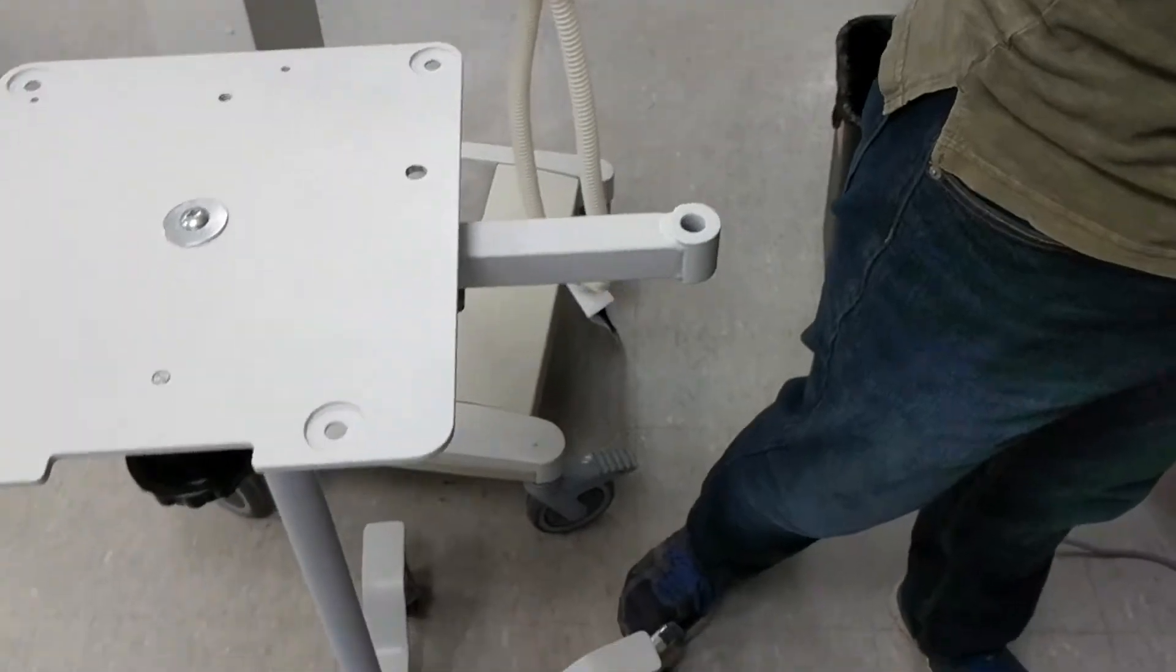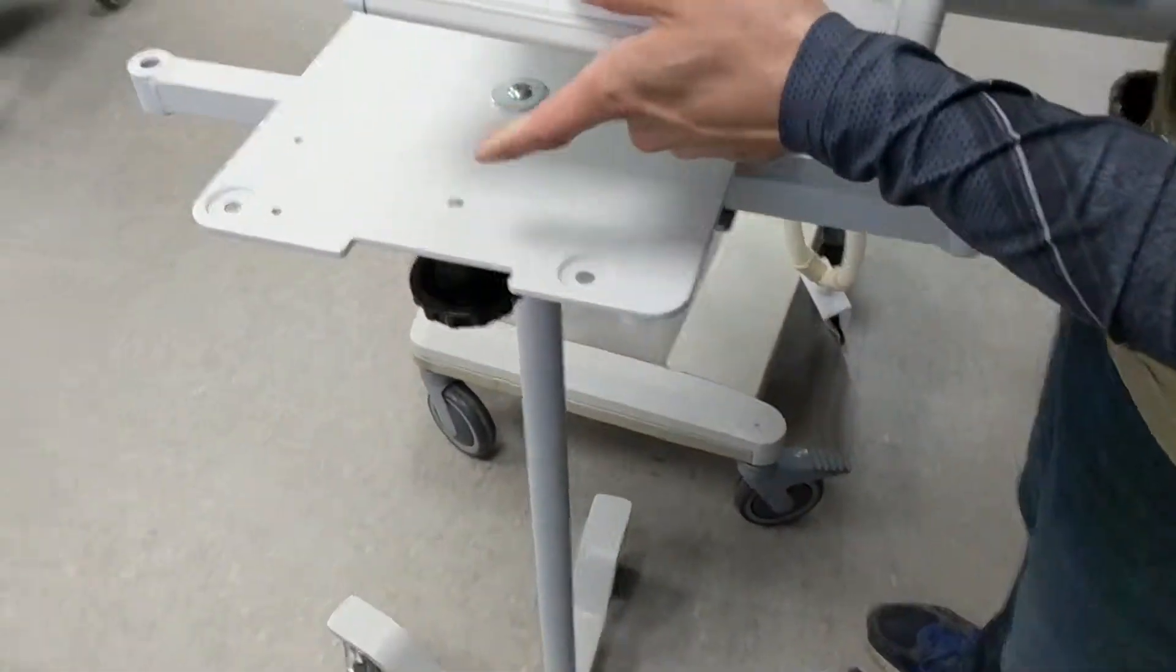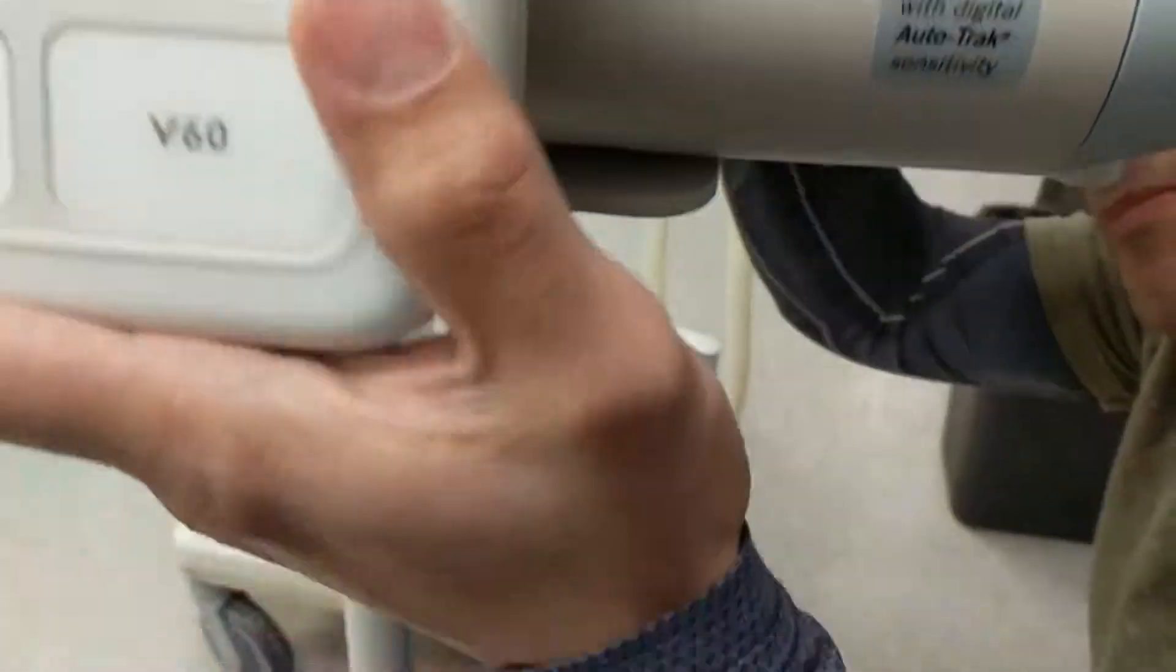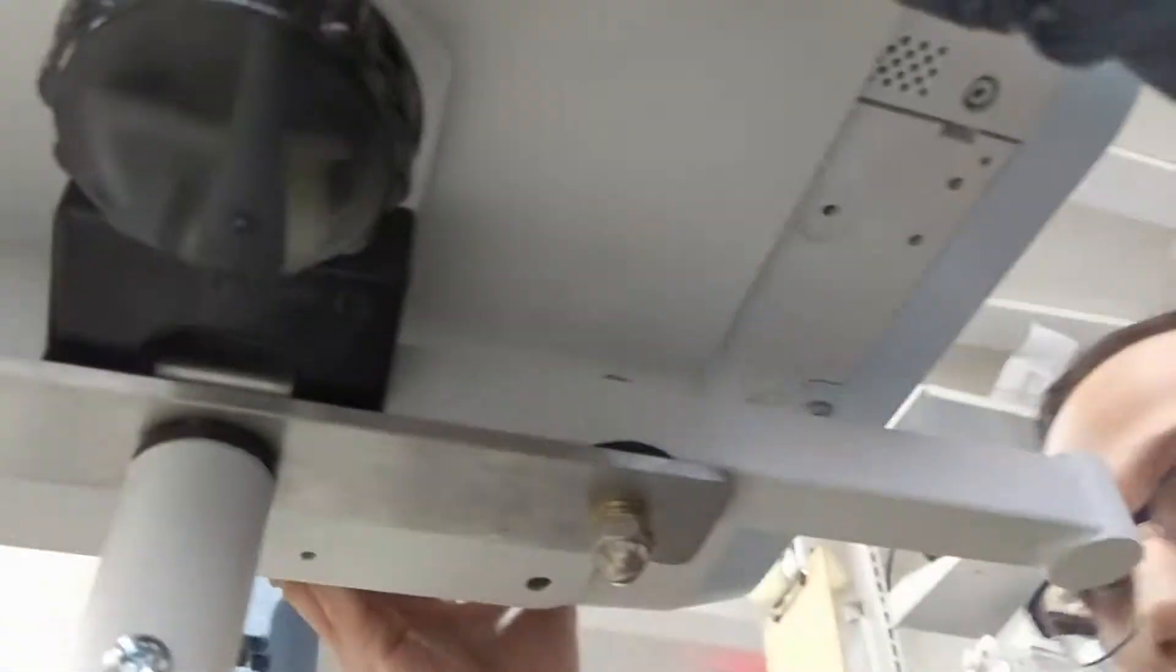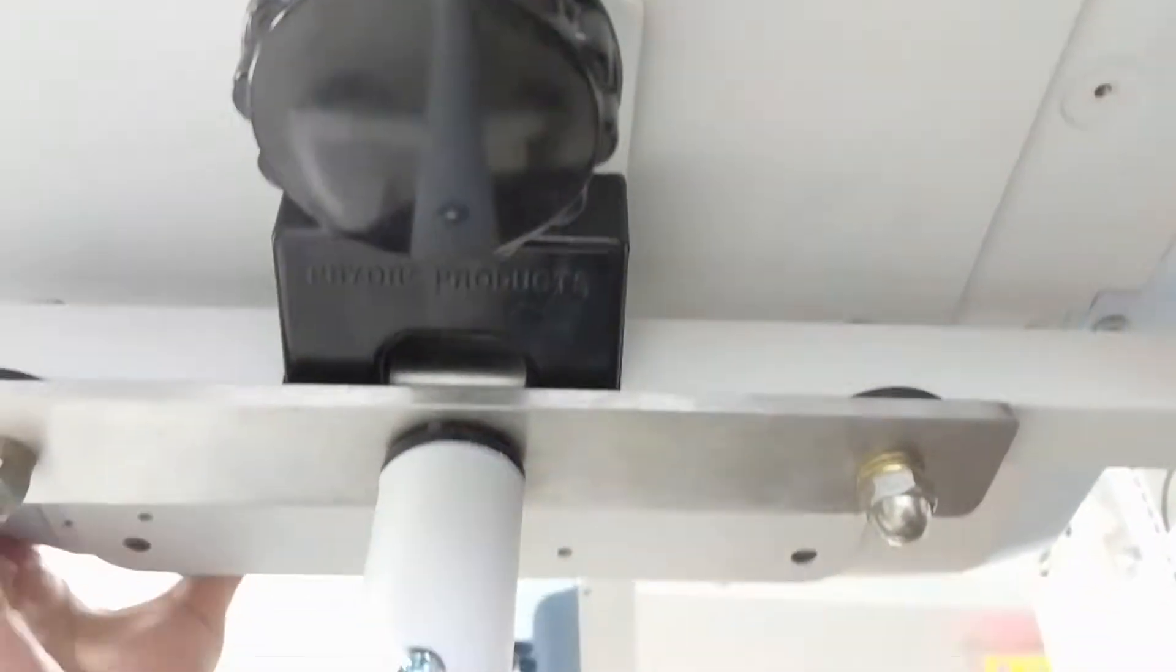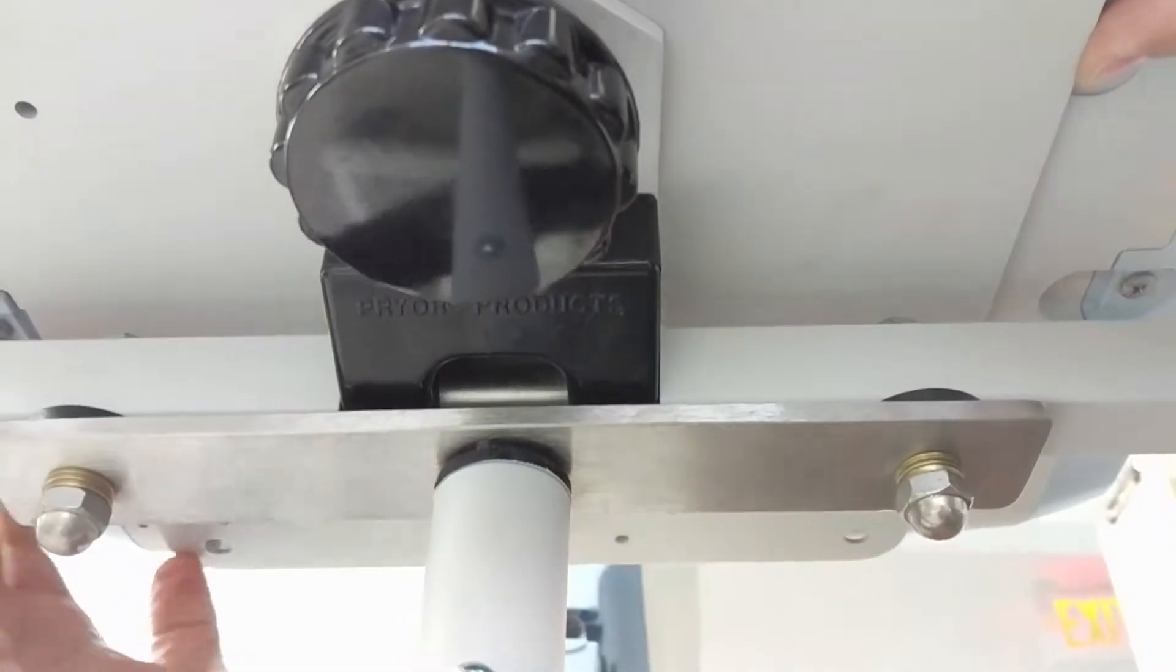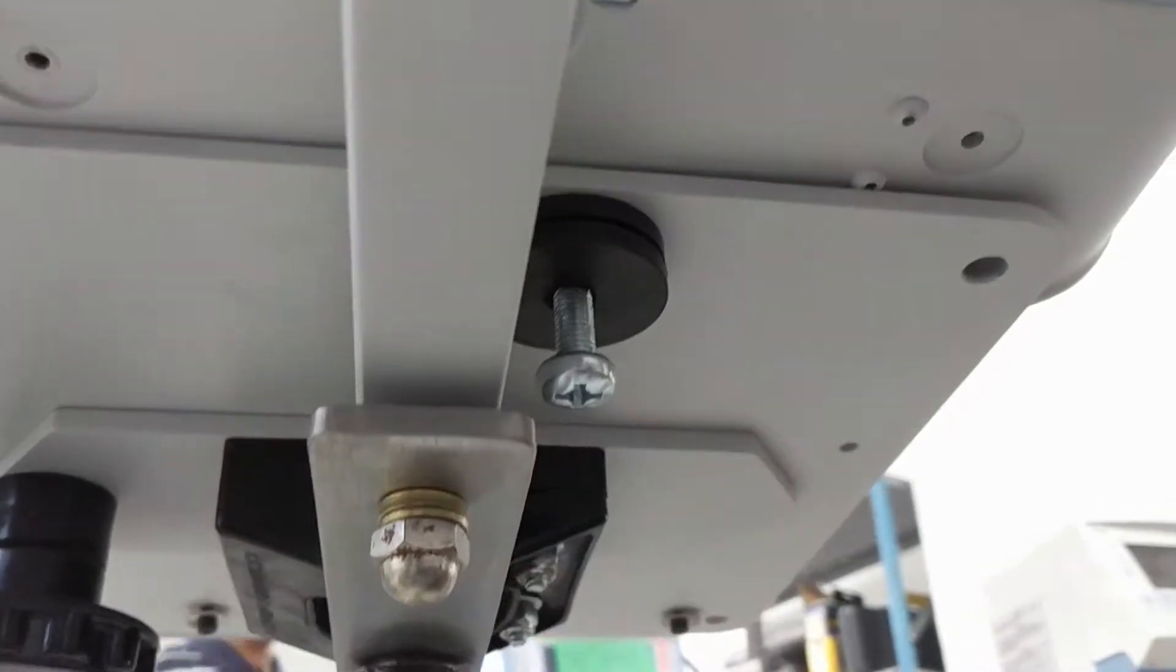So we're going to grab the unit, screen will be facing the notch, and the hole will be facing you, like so. And basically now, it's all a matter of lining up the holes.